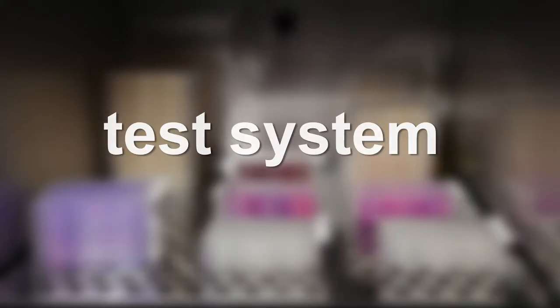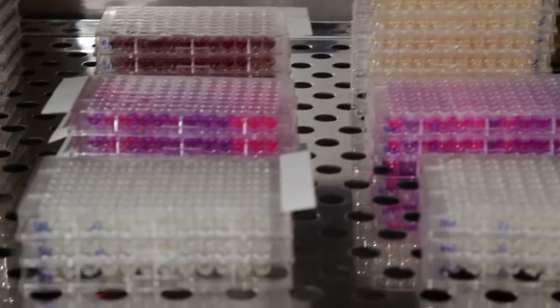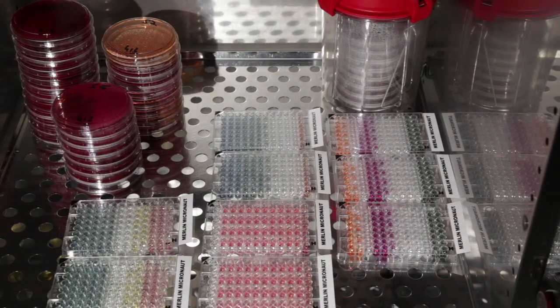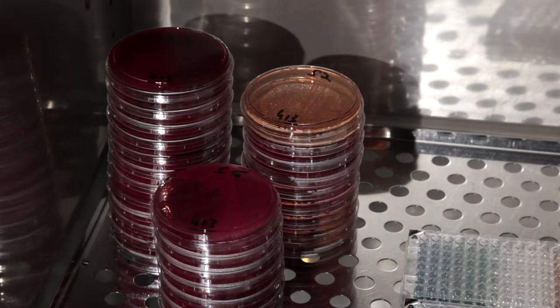The test system provides the rapid option for 5 to 6 hours of incubation or the overnight option for 18 to 24 hours of incubation.